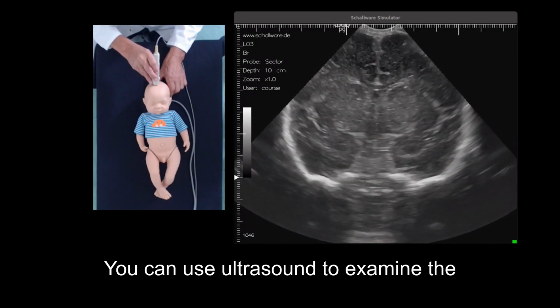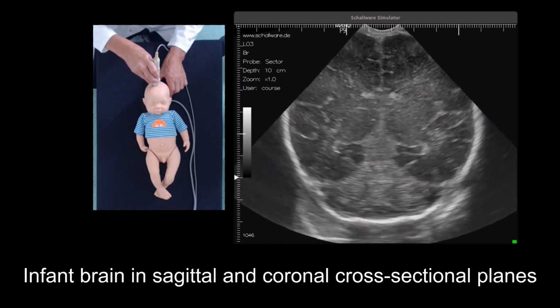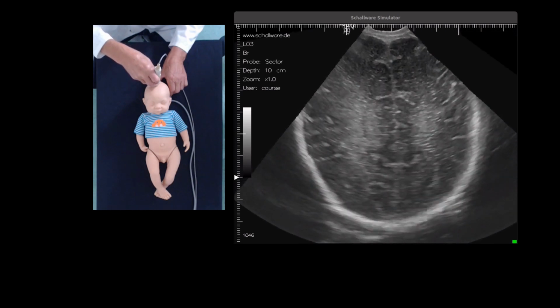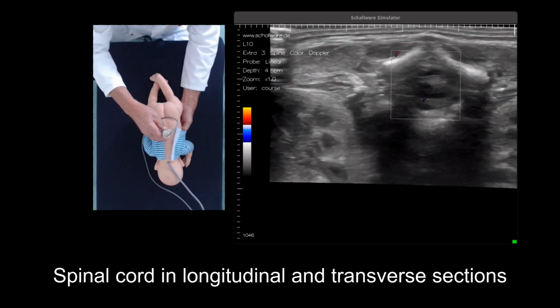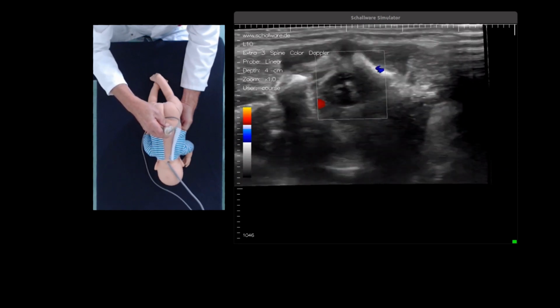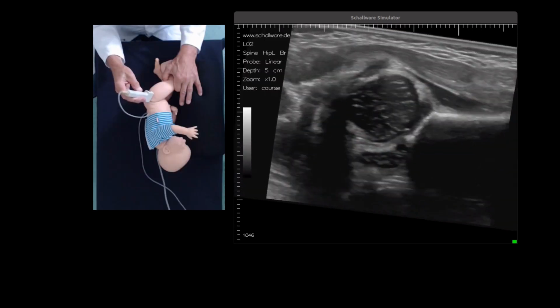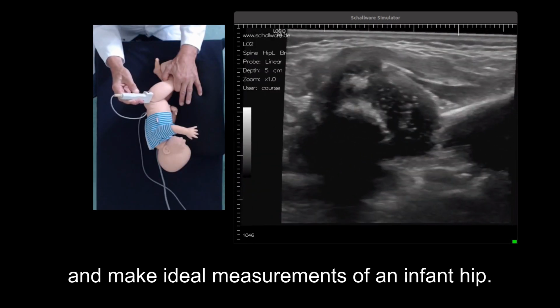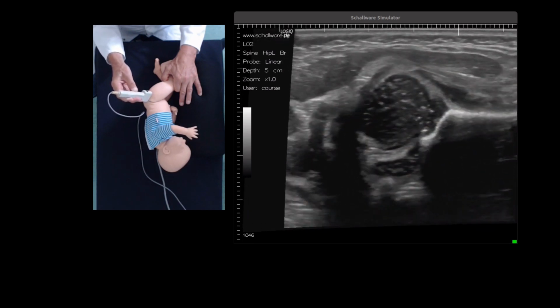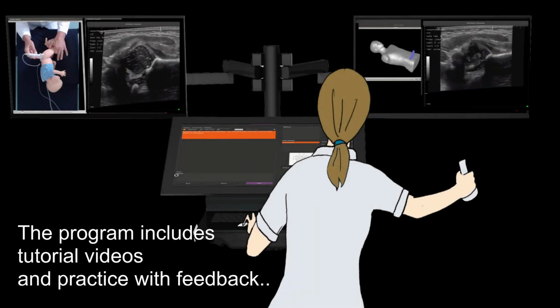You can use ultrasound to examine the central nervous system of newborns, the infant brain in sagittal and coronal cross-section planes, the spinal cord in longitudinal and transverse sections, and make ideal measurements of an infant hip. The program includes tutorial videos and practice with feedback.